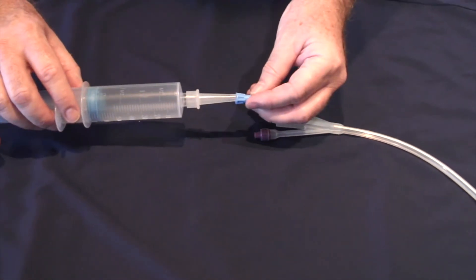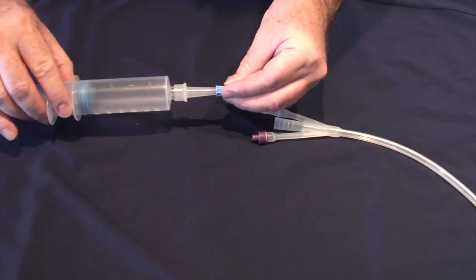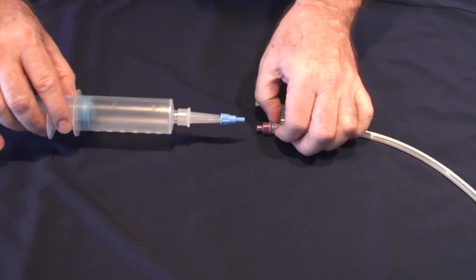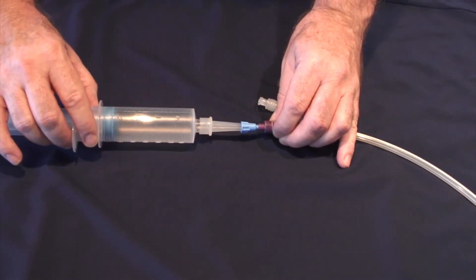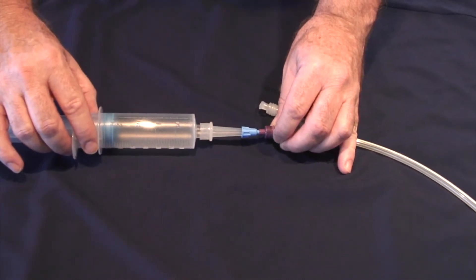When the blue tip is attached to the cone, it may be used for inflation of the catheter balloon.